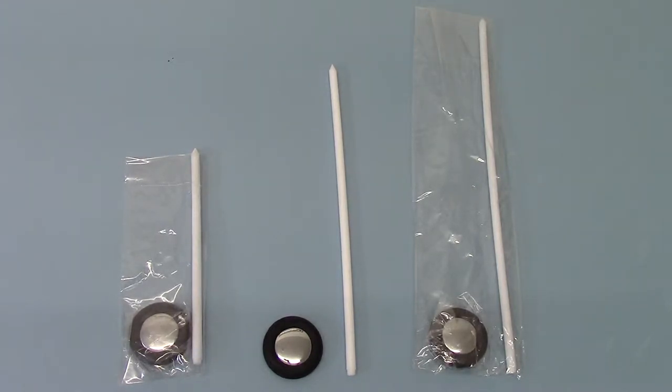Welcome to this product demonstration video where we're going to run you through the variations or options you've got on handle length with the Valumed versions of the Queen Square Reflex Hammer.